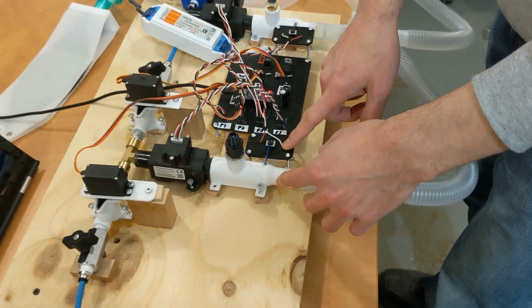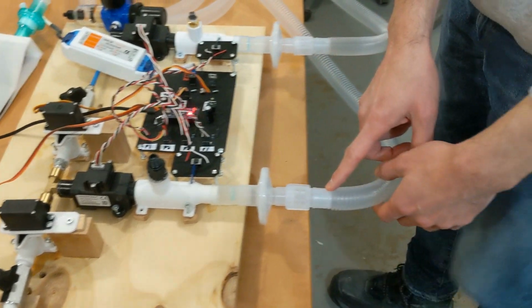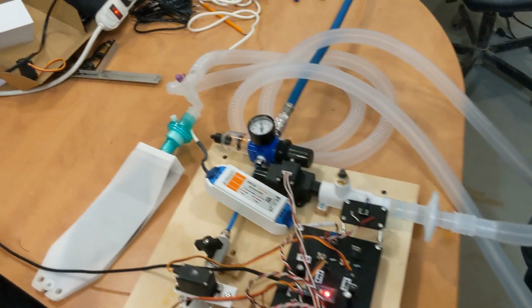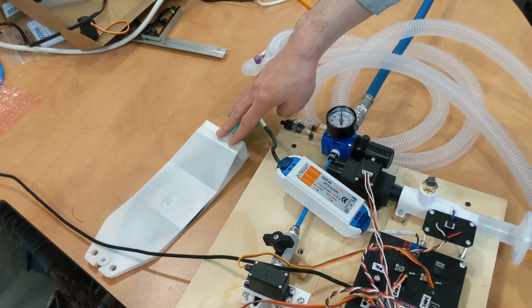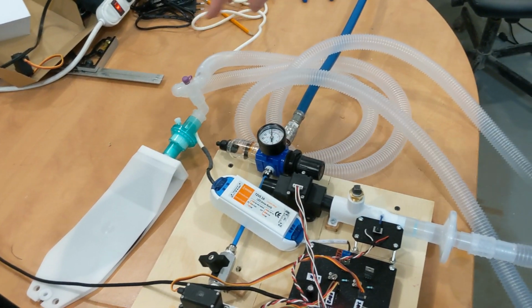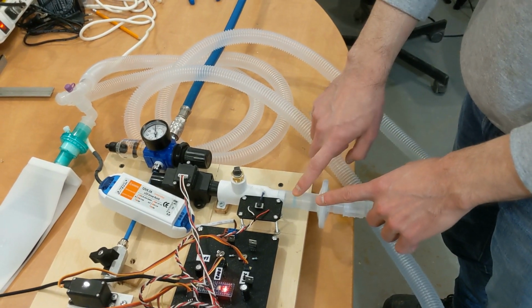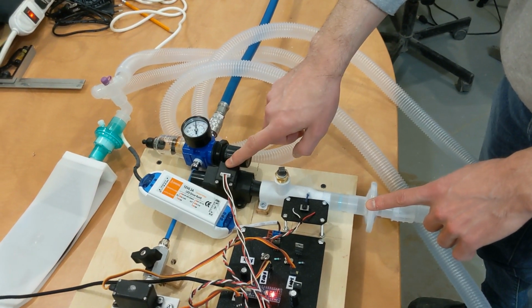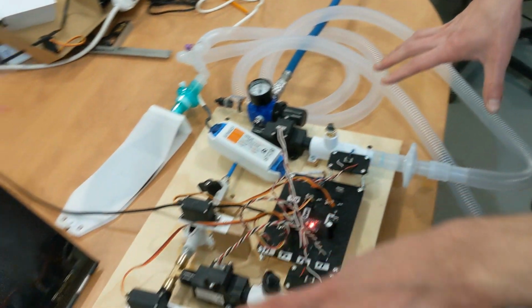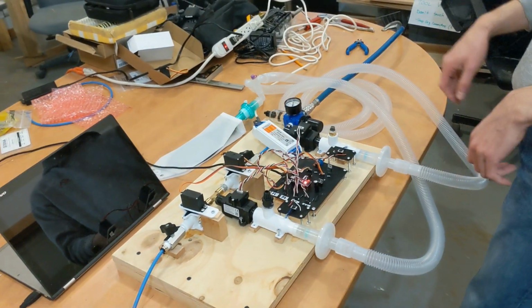There's a pressure sensor here, then it goes through a one-way valve, a HEPA filter, and down the circuit all the way to the patient. This is a test lung that we have in place to validate the system. Now the air comes back out through the exhaust tubing here, through another HEPA filter, another one-way valve, another pressure sensor, and finally a last flow sensor. That allows us to compute the pressure at all points in the system as well as the flow at all points in the system.